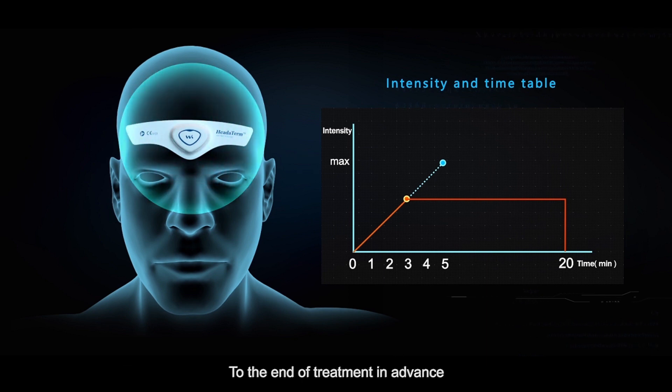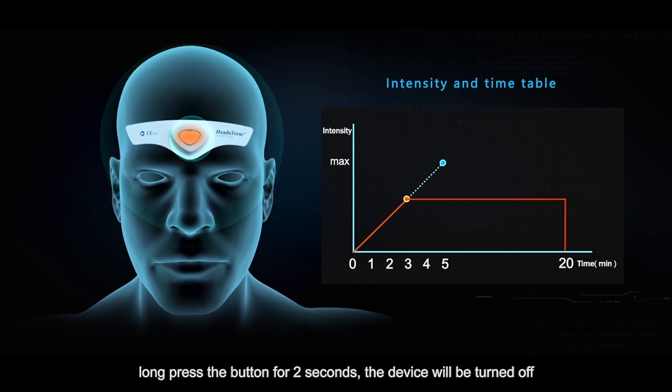To end treatment in advance, long press the button for two seconds. The device will be turned off.